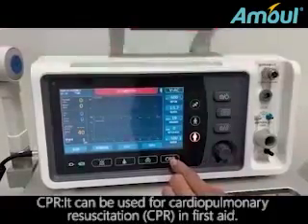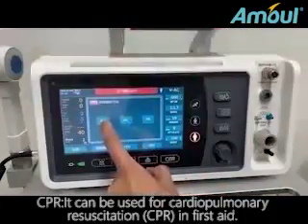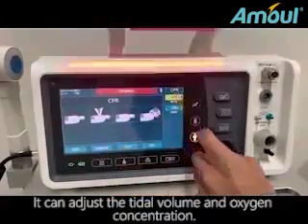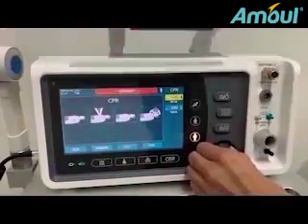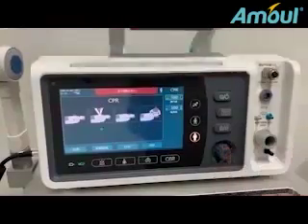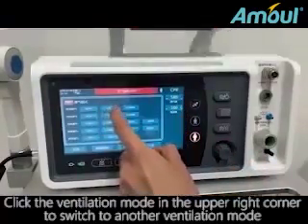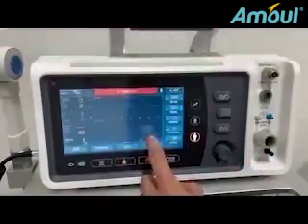CPR. It can be used for cardiopulmonary resuscitation. CPR in first aid. It can adjust the tidal volume and oxygen concentration. Click the ventilation mode in the upper right corner to switch to another ventilation mode.